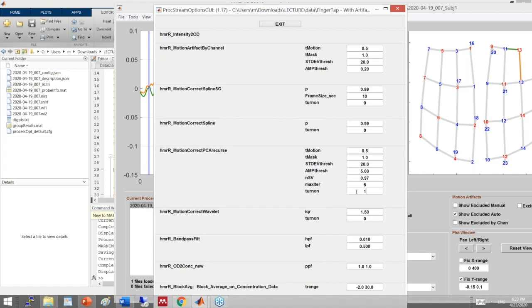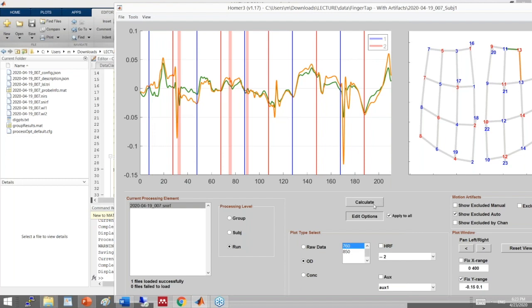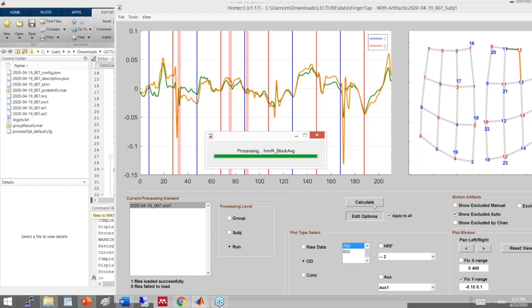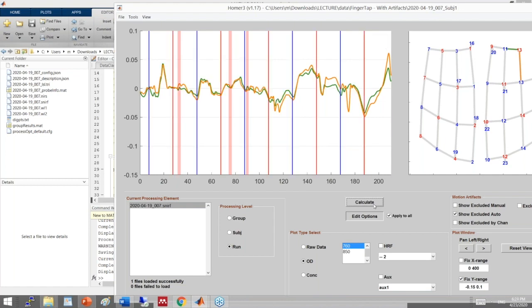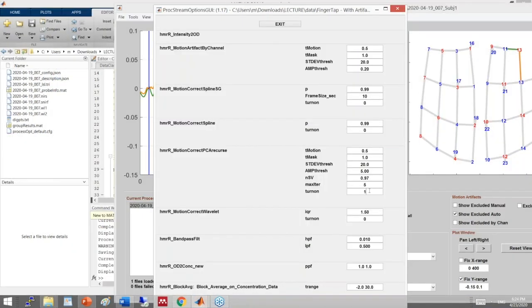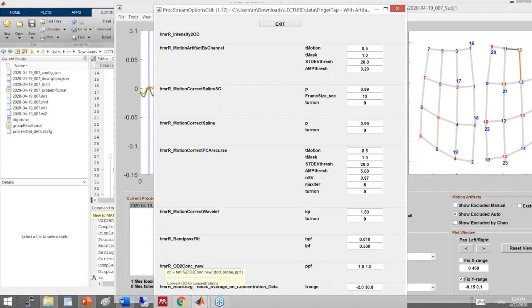The other method was targeted PCA, which applies PCA on the portions of data contaminated by motion artifacts. It did a nice job overall. One important note: CBSI should be added after the optical density-to-concentration conversion, unlike the other motion correction methods which operate on optical density.